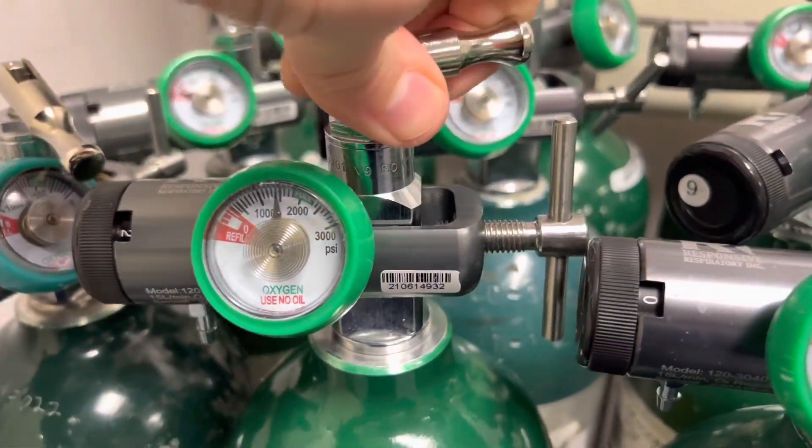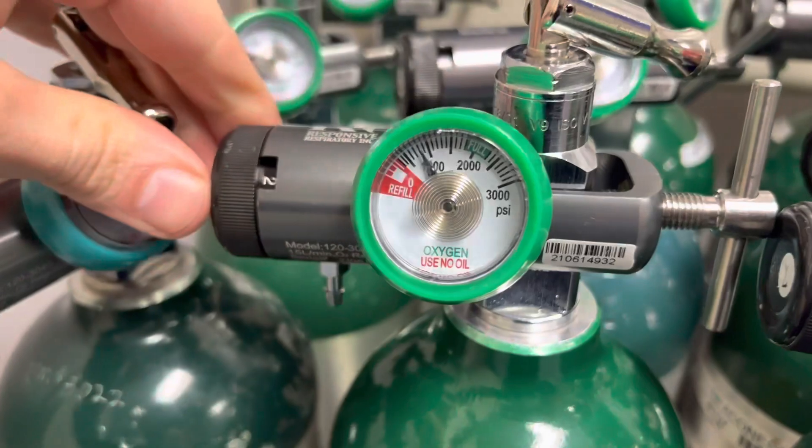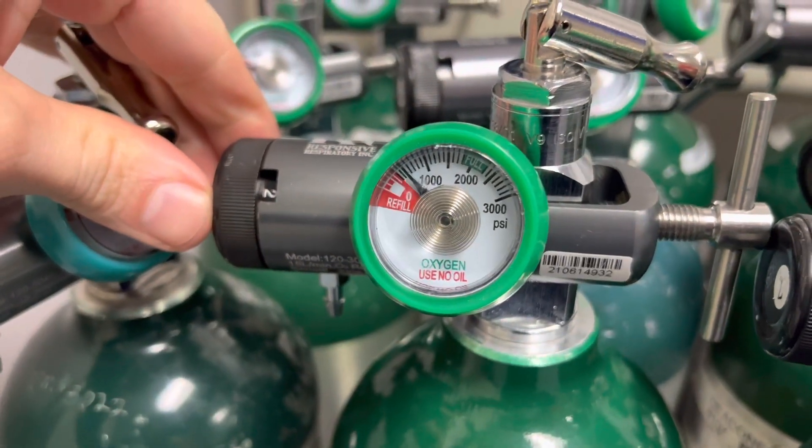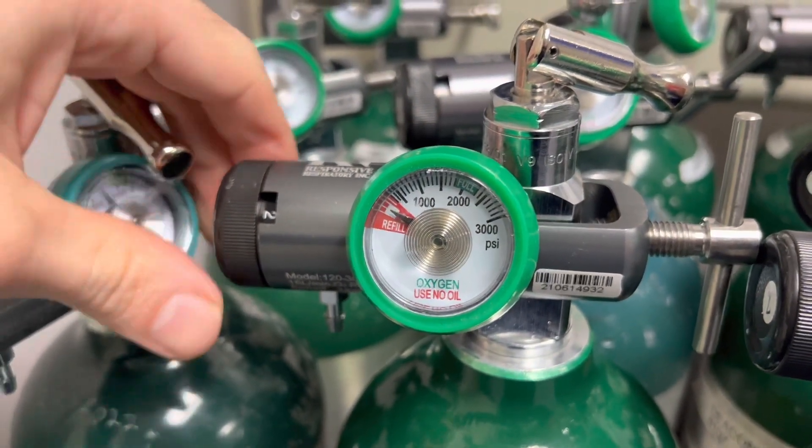The pressure gauge should depressurize at this point, then verify the flow regulator knob is set to zero.